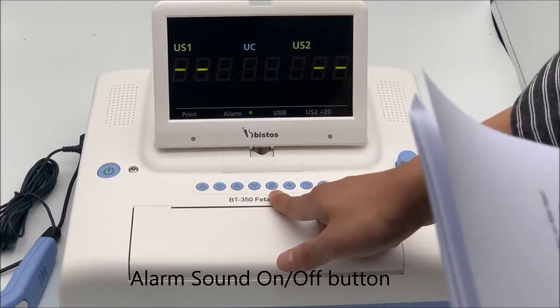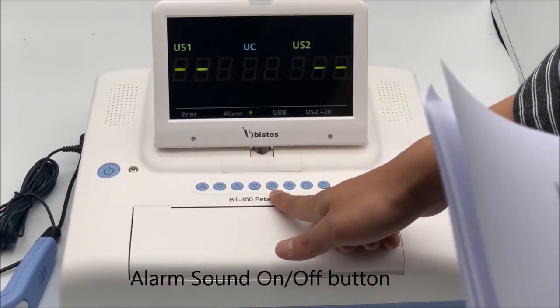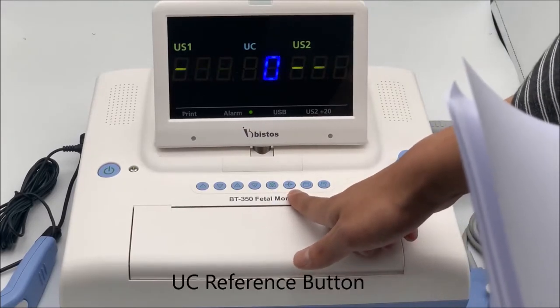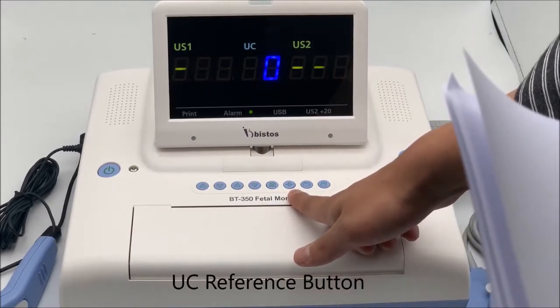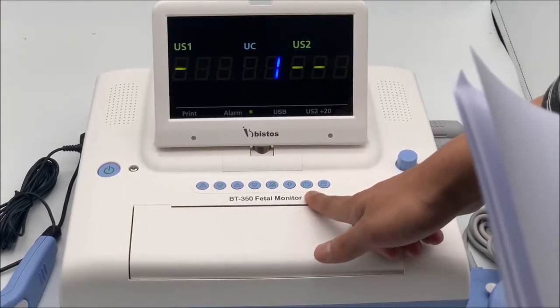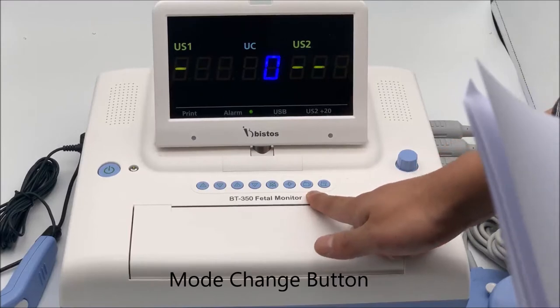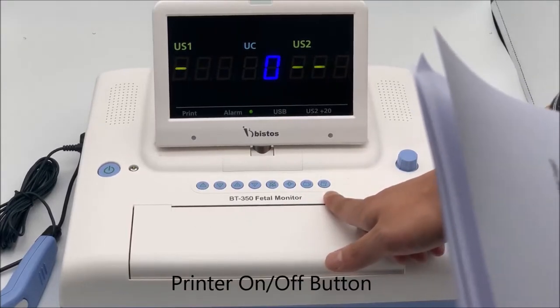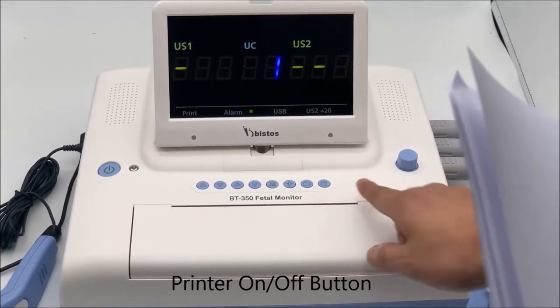Alarm Sound On and Off Button. UC Reference Button. Mode Change Button. Printer On and Off Button.